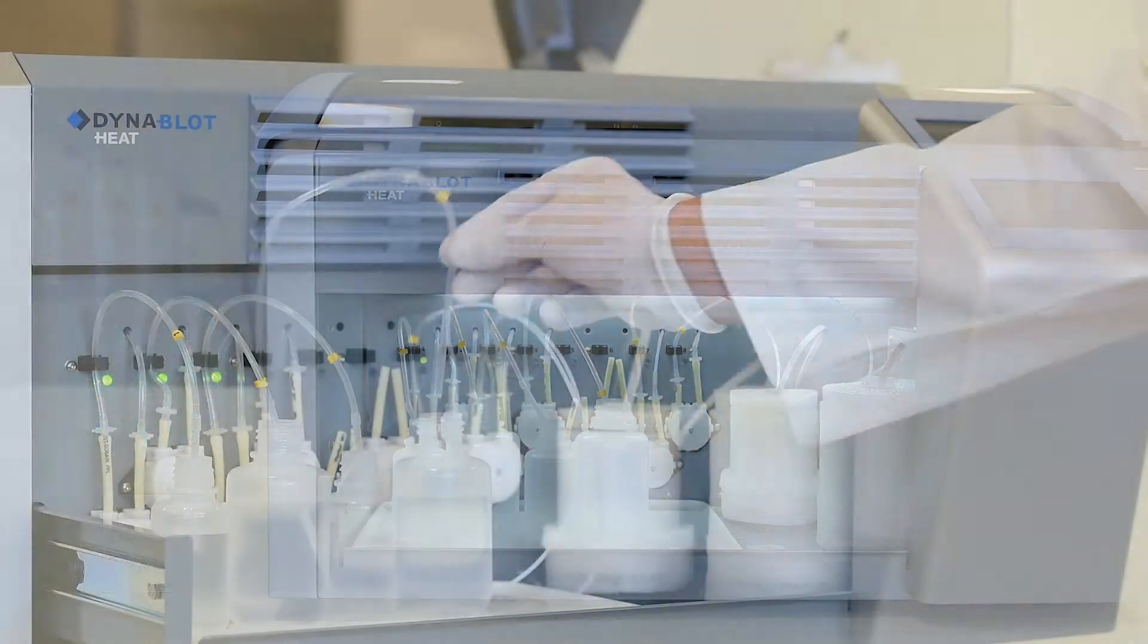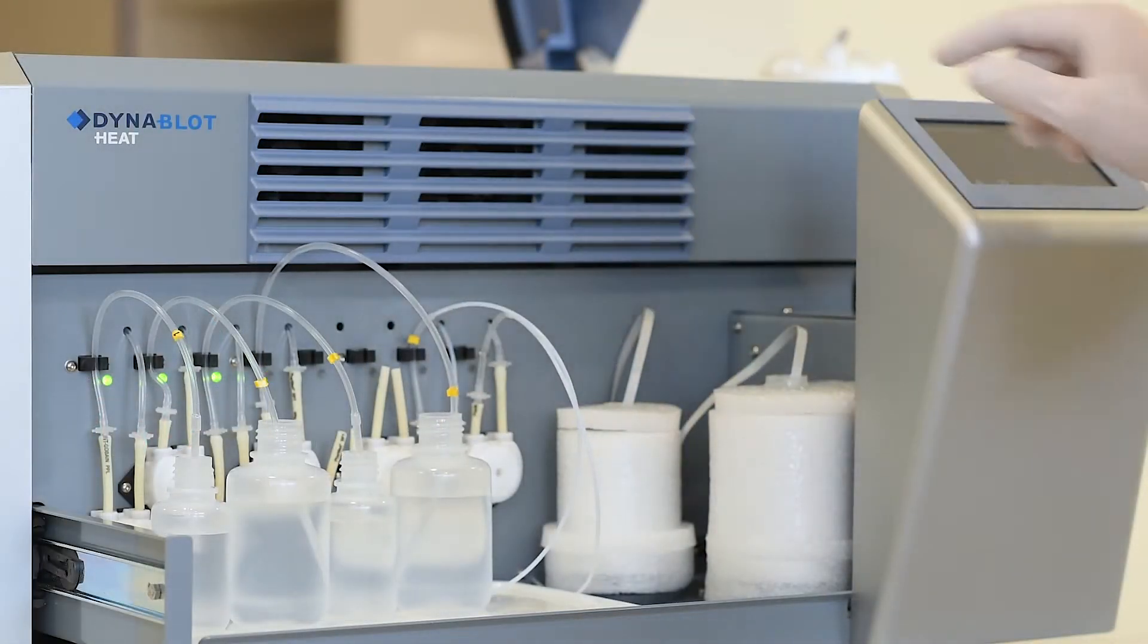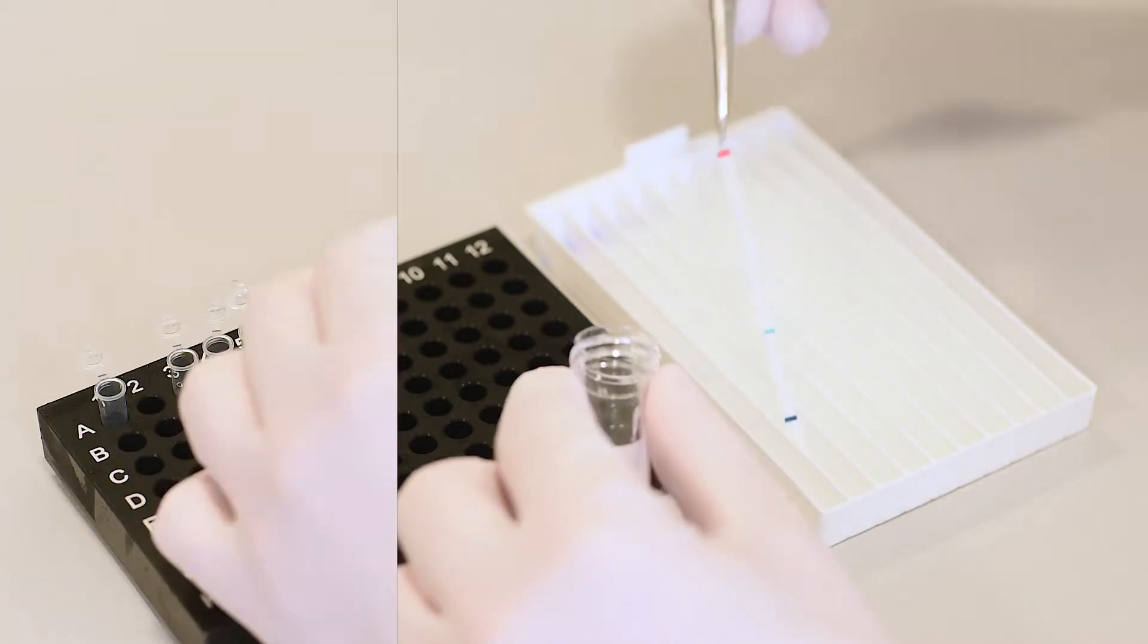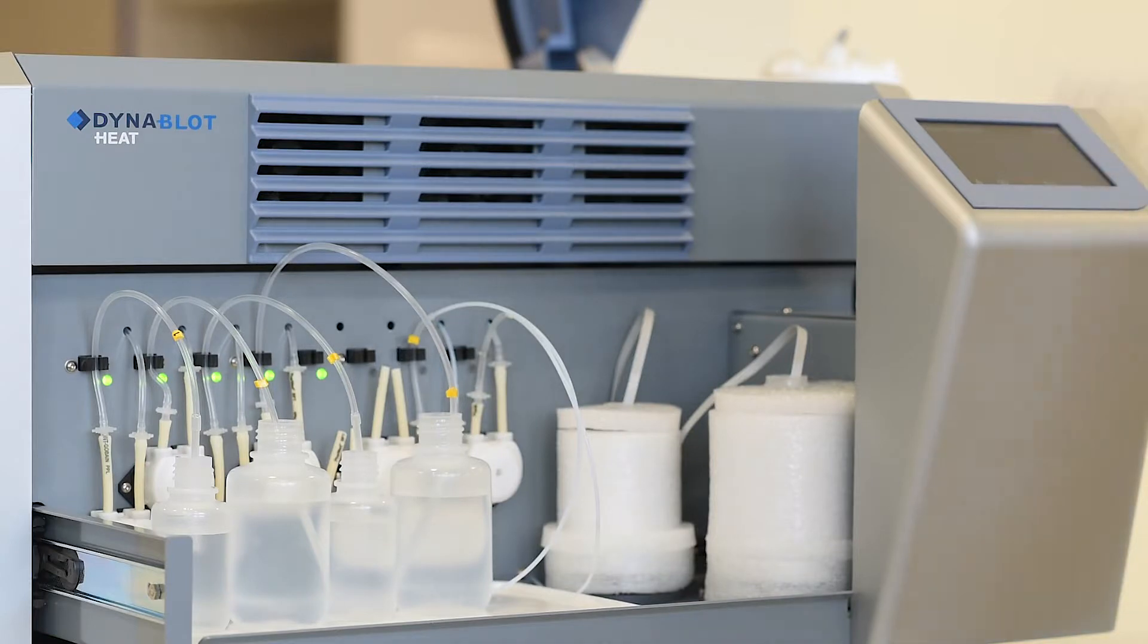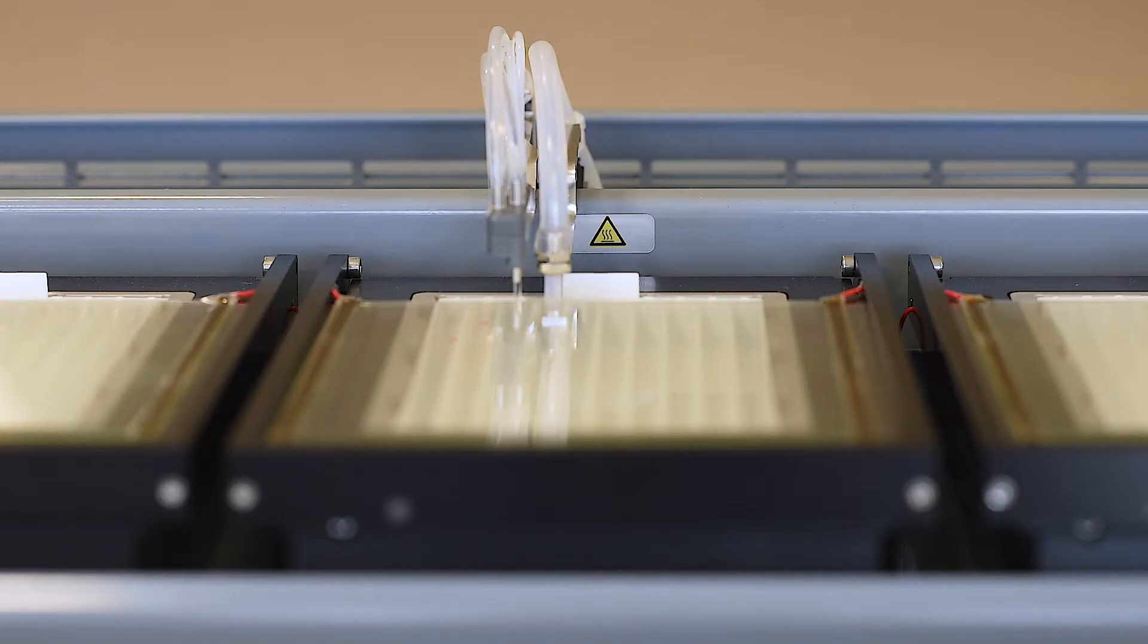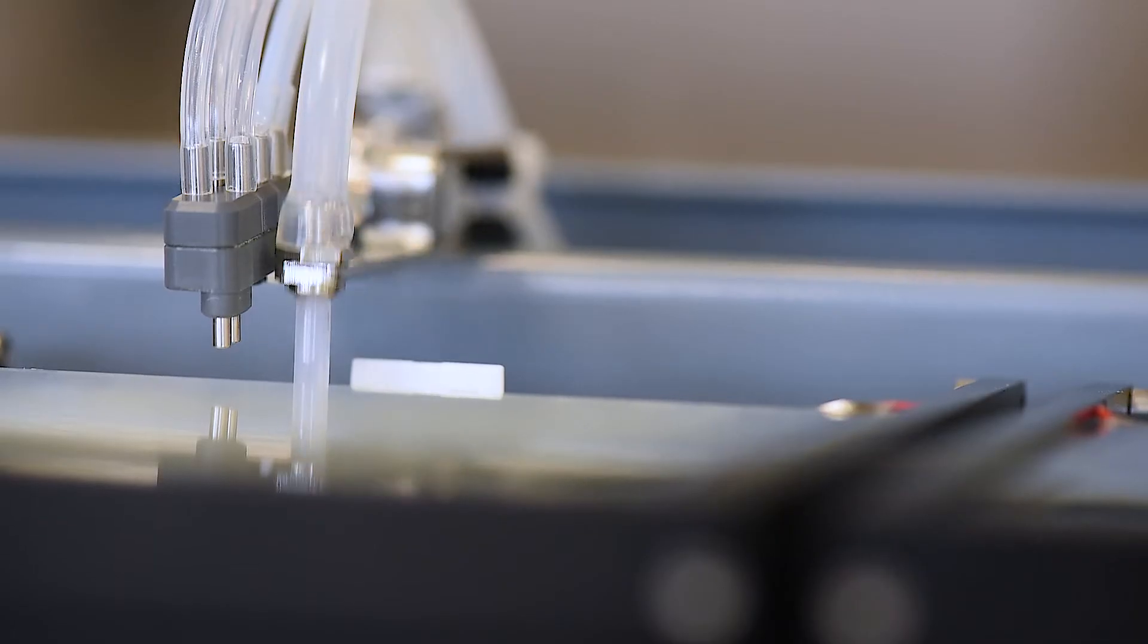After the user inserts the reagents, loads the trays with inserted strips and pipetted samples, the instrument automatically conducts all the strip processing steps, like dispensing the reagents, incubating with precise temperature control and rocking, liquid removing and washing.